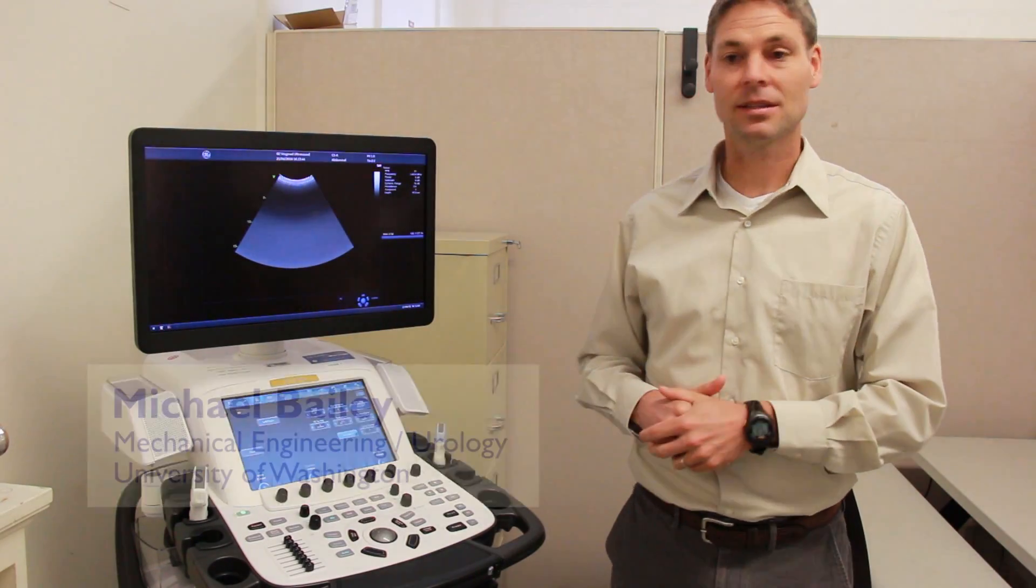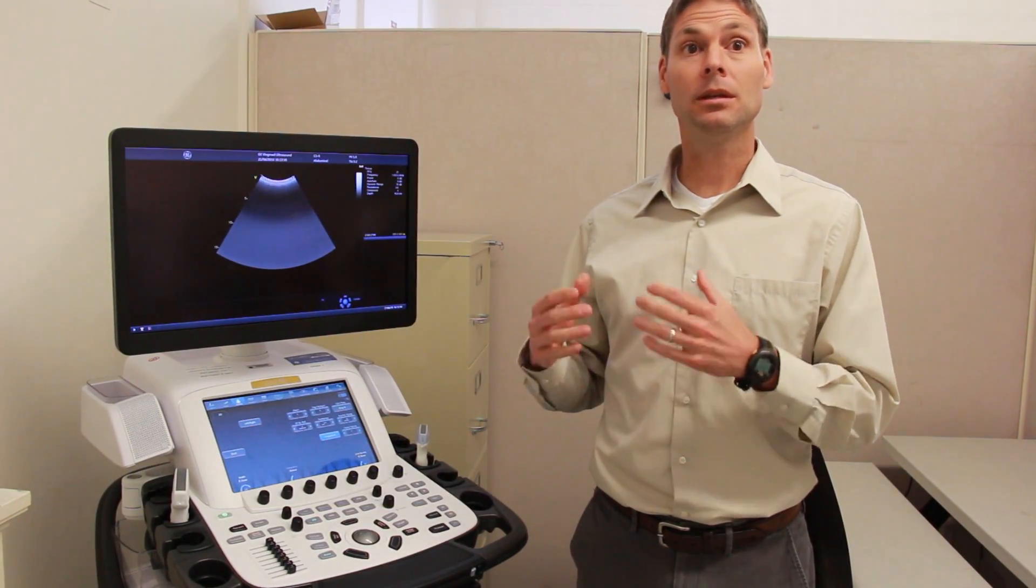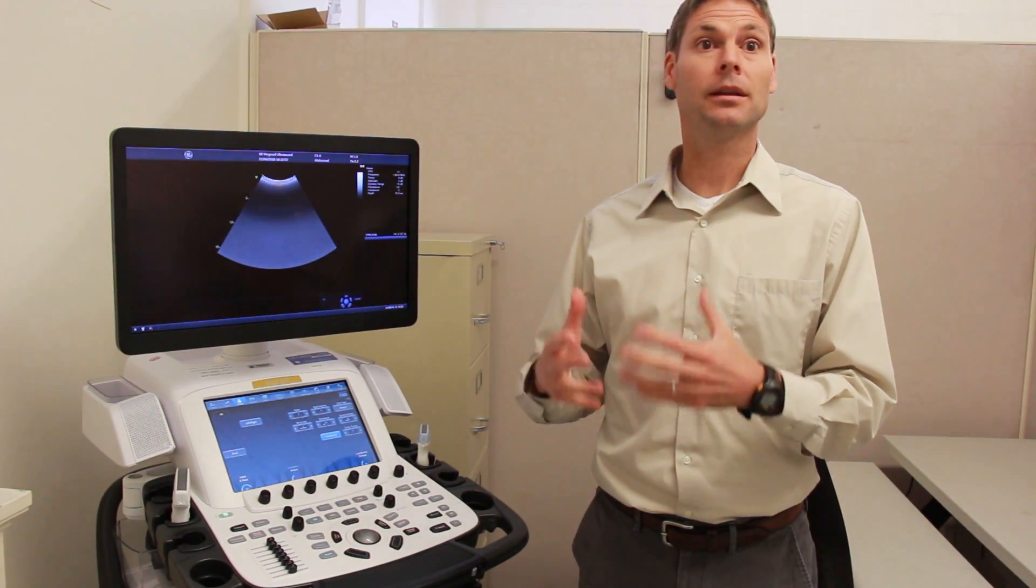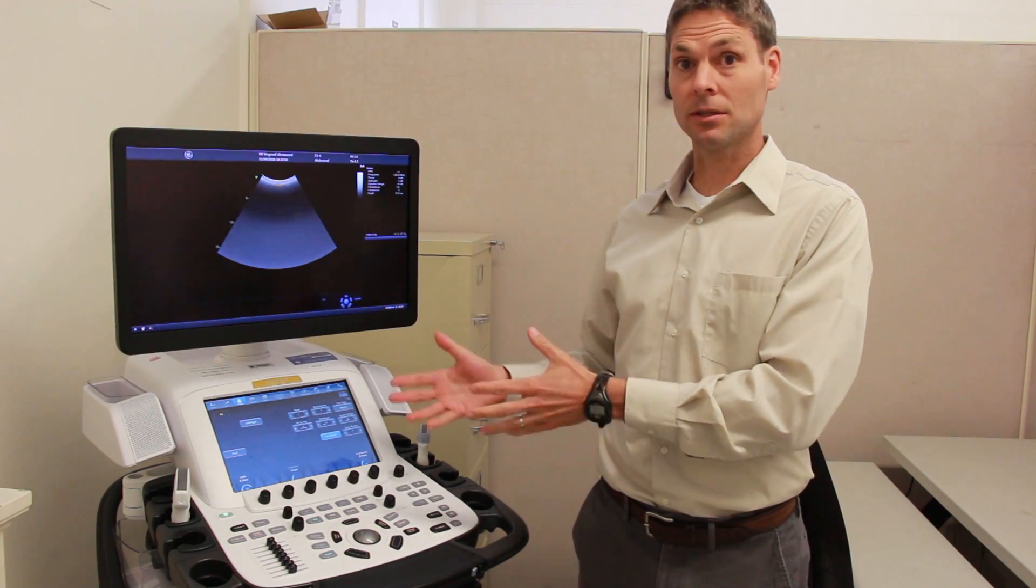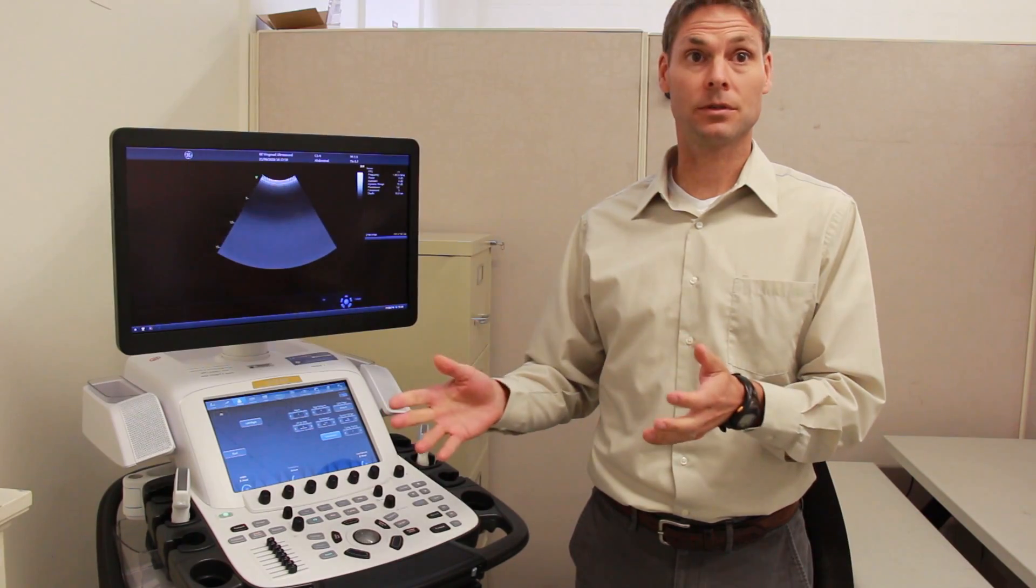This is NASA's system that they sent us. We worked with NASA to develop a flexible ultrasound system, so we deliver software like an app that enables this hardware to both better image kidney stones and then move those kidney stones.